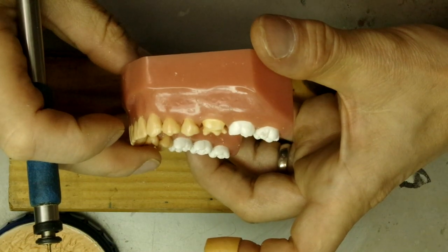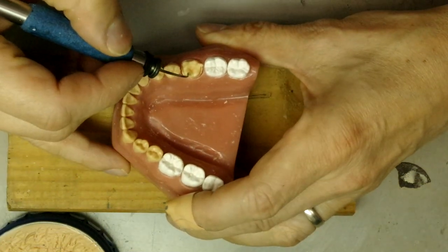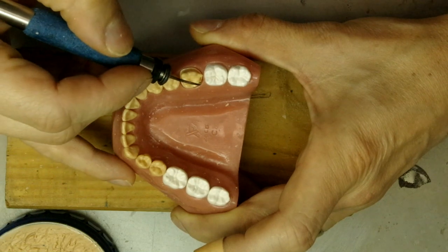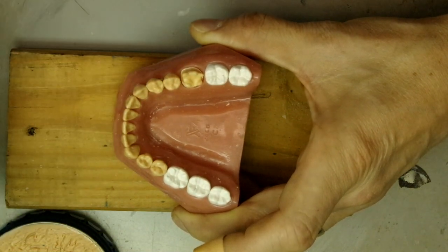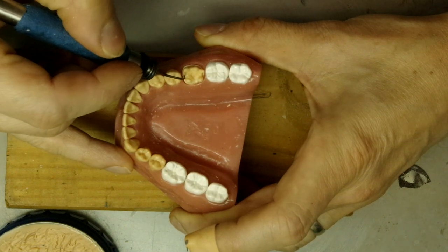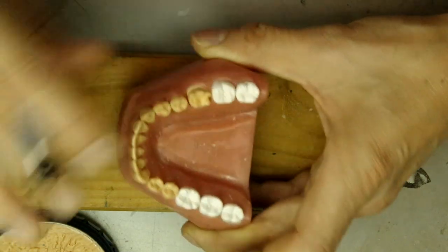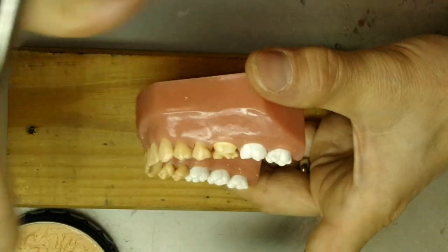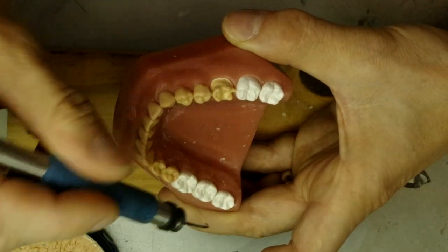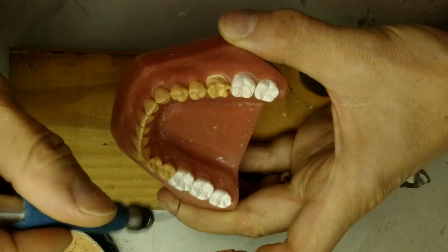Two big ones on the mesial, and then the distal is a small one. Then we go to the lingual. Remember, this is the lower, so the lingual cusps are shorter than the buccal cusps. Remember the curve of Spee and the curve of Wilson — the occlusal plane on the lower is concave. It goes down like this; it's concave from the occlusal also. These are the high cusps and then these are the lower cusps, so it kind of goes in a curve.